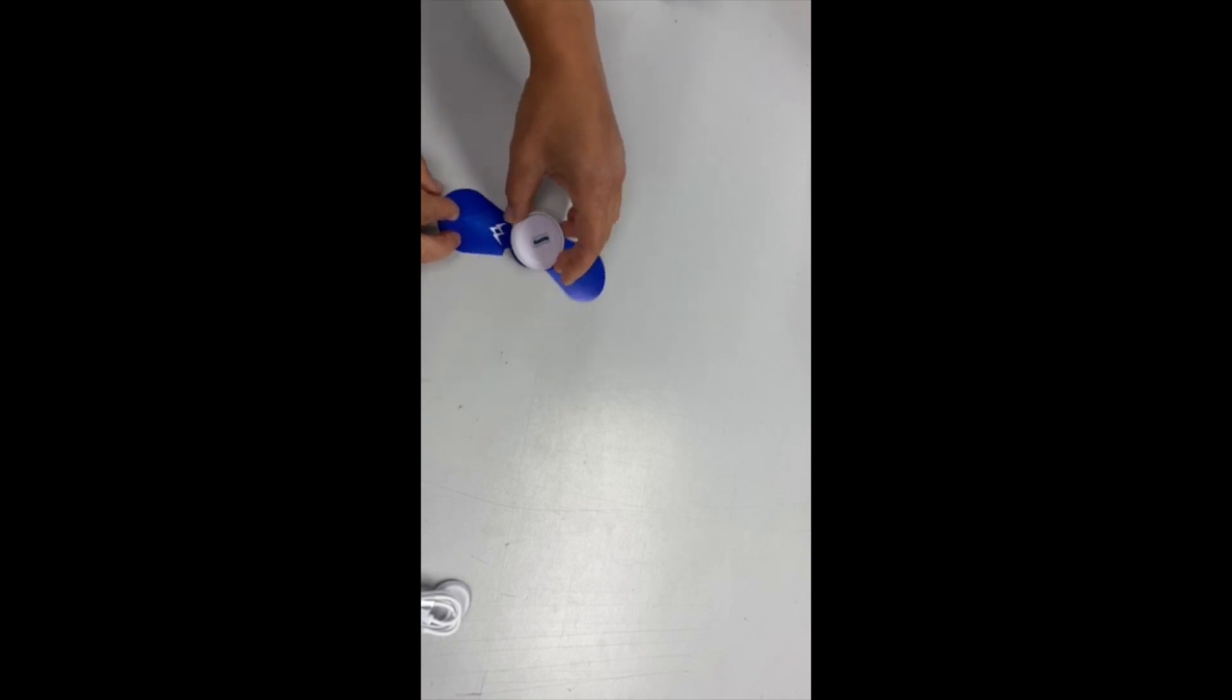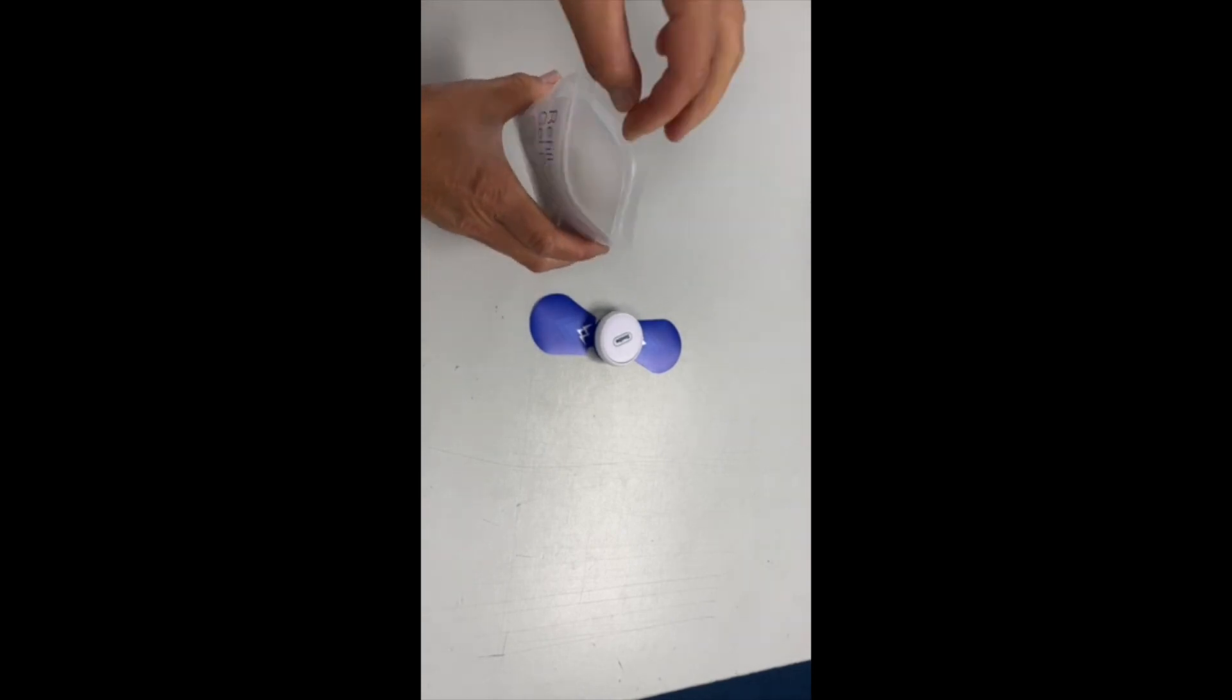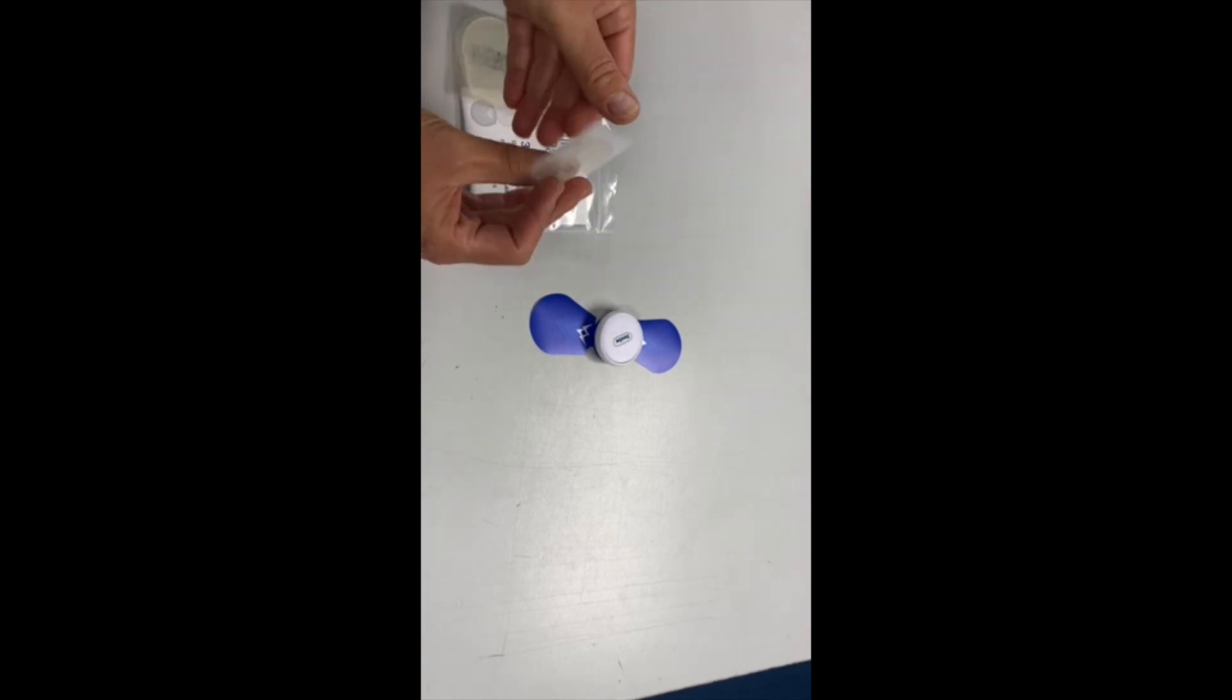We'll then just magnetically clip it back on again until you hear a click. To begin using your Sabo Stim 1, take your pack of gel pads, take out one of the pairs, and you're going to see that it says skin side.